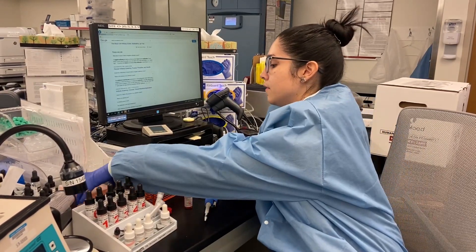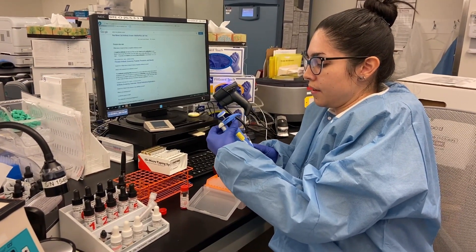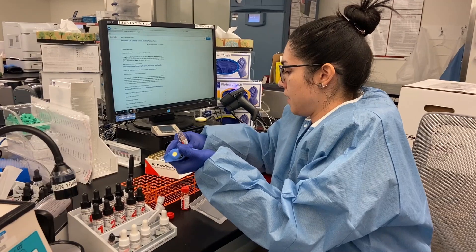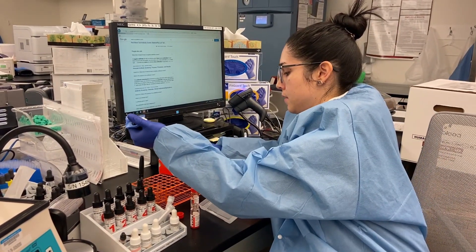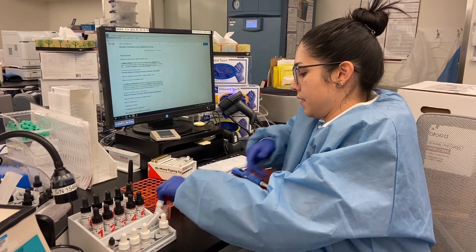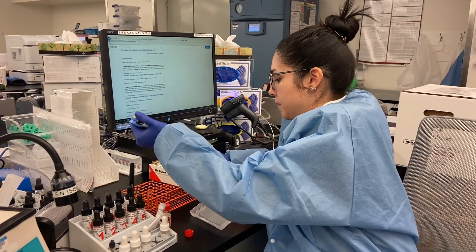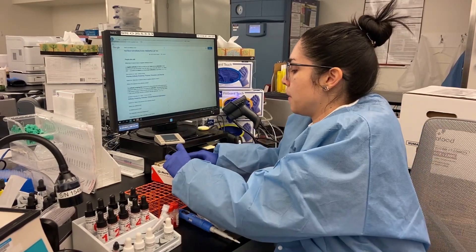We get 50 microliters of screen cell one, push it back to 50, take the foil out, and add screen cell one, then screen cell two. All of this is supposed to be labeled beforehand with the patient's name — screen cell one and screen cell two.